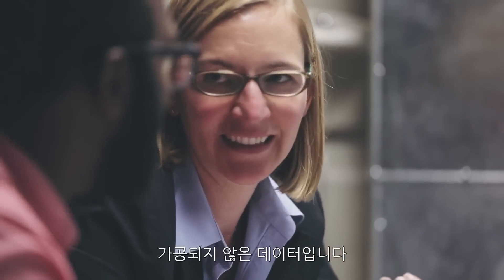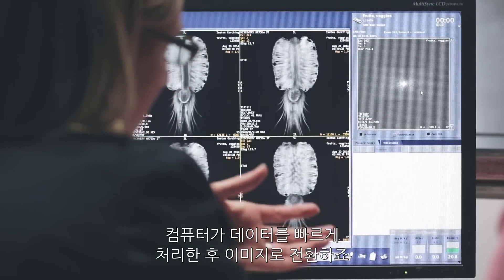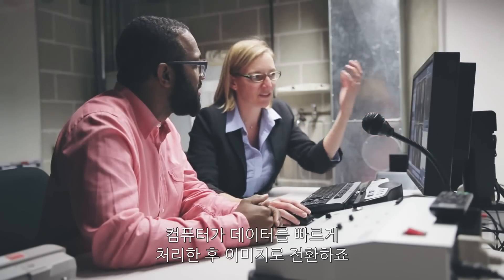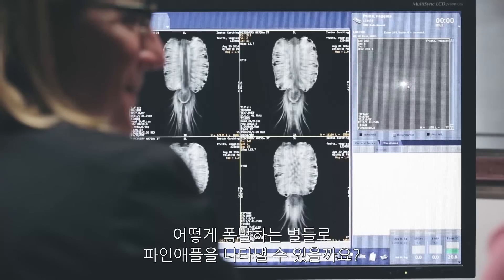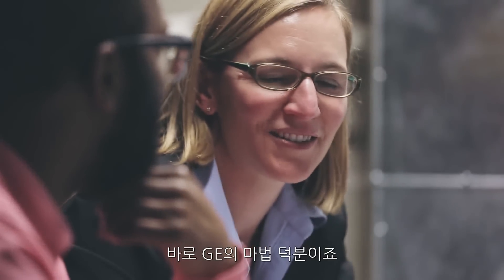This is the raw data. Yeah. And then the computer does a quick mathematical process on this to convert this data into an image that is more meaningful for us. How did we figure out how to tell the computer to turn an exploding star into a pineapple? That's the magic of GE.